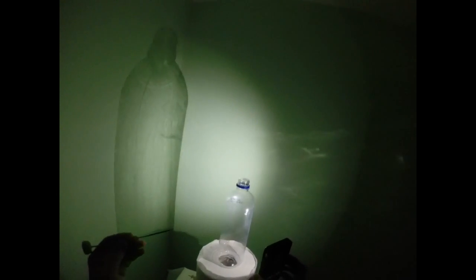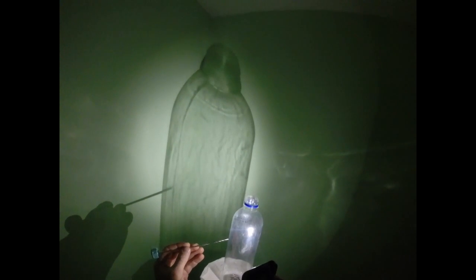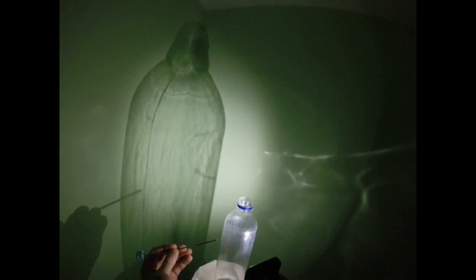With my needle approaching the ventral space from one side and the light source rotated towards the needle, I get a shadow on the opposite side of the wall. In fluoroscopy, the X-ray tube moves towards the needle and the image intensifier moves away from the needle — we call this the contralateral oblique view. If the light source is rotated to the opposite side, I get a shadow on the side of the needle placement; the X-ray tube is away from the needle and the image intensifier is on the side of the needle — we call this the ipsilateral oblique view.